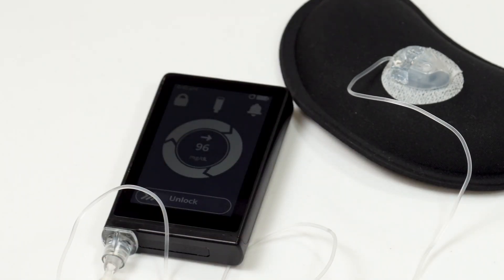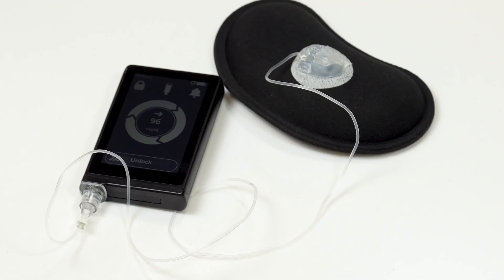This will not deliver extra insulin. It will deliver insulin to fill the space where the inserter needle was. It will also log the infusion set change and will remind you when it is time to change your infusion set again.